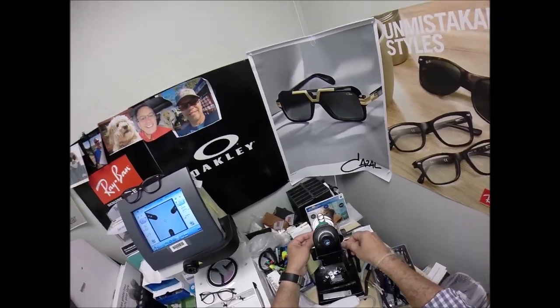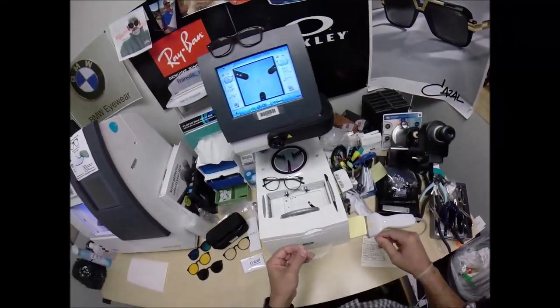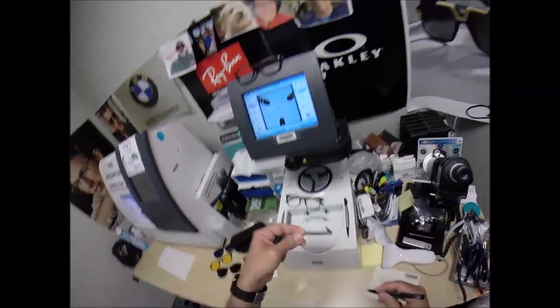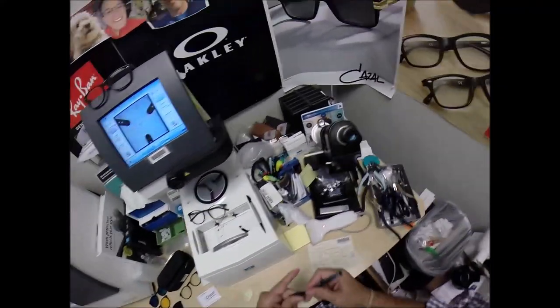Minus 250. So I know I'm in the right place. Put three dots on your lenses. And let's turn it around this way. So that'll be the right lens. I'm going to put an R, as we say here, North Carolina on the right lens.